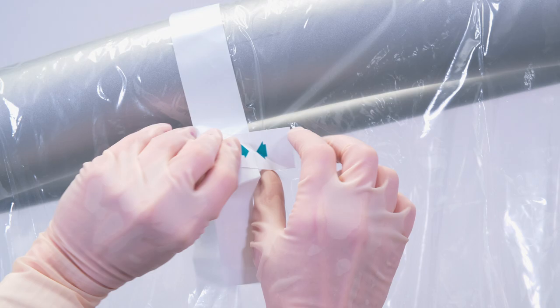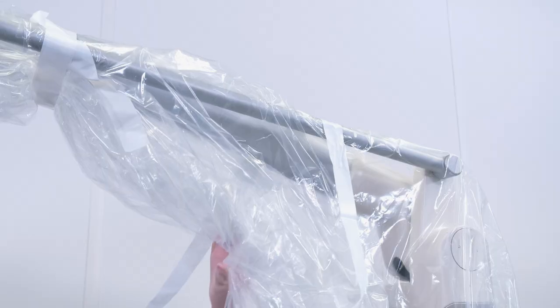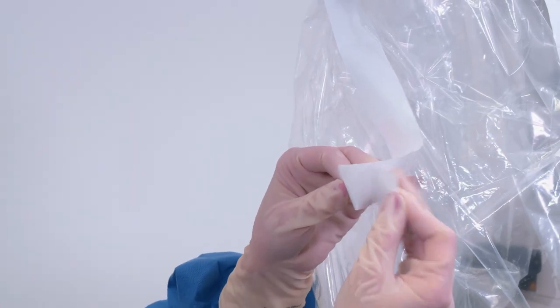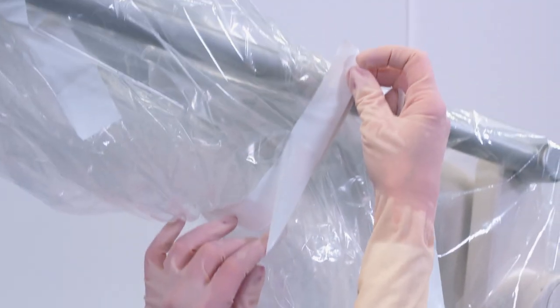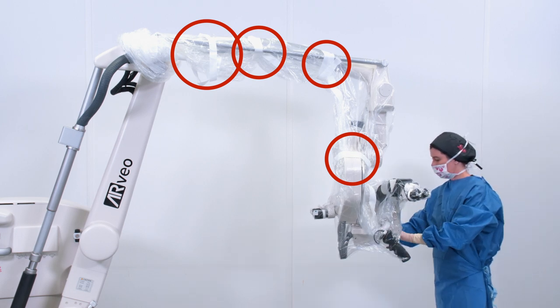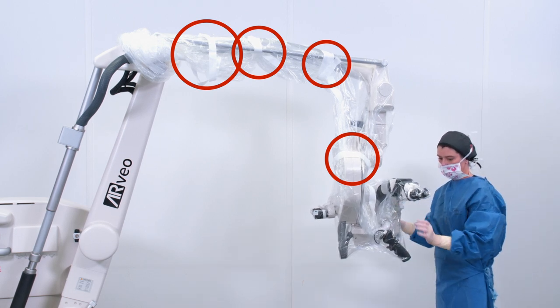Wrap the bands around the microscope head and arm, placing them tape to tape and not tape to plastic, and making sure the drape is fitted airtight to the microscope. Check that the straps are attached around the microscope head and around the arm as shown in the images.